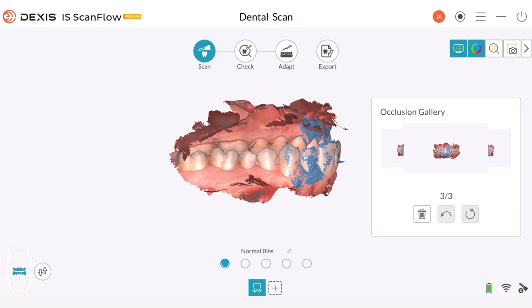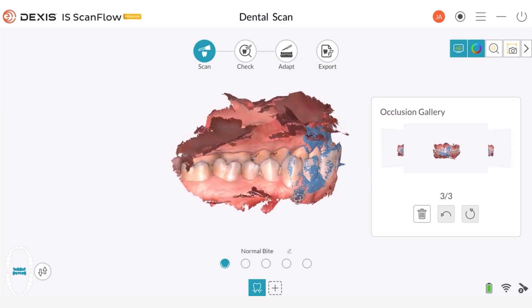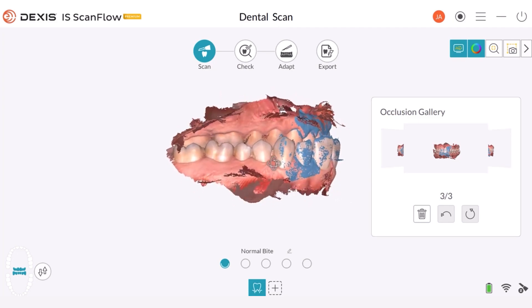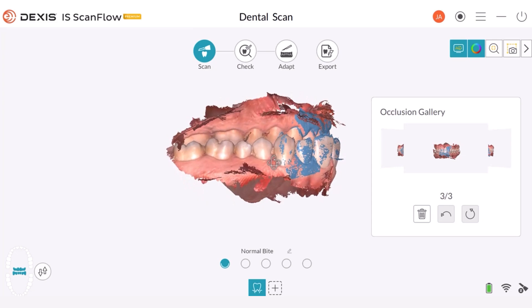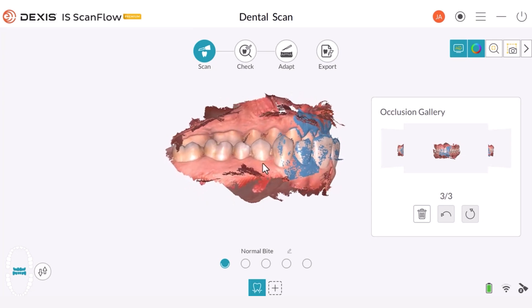In this tutorial, we will explore how to correct a mislabeled arch. To achieve this, we need to change the orientation of the arch. At the beginning of the scan, I intentionally scanned the arches so they would be incorrectly labeled. As a result, as you can see, the scan is upside down.